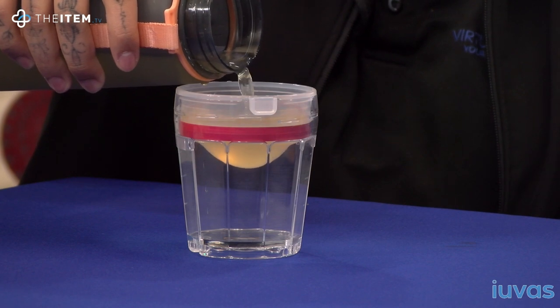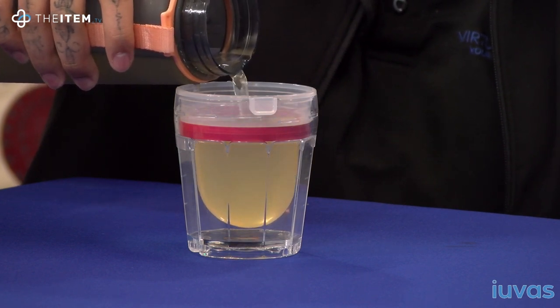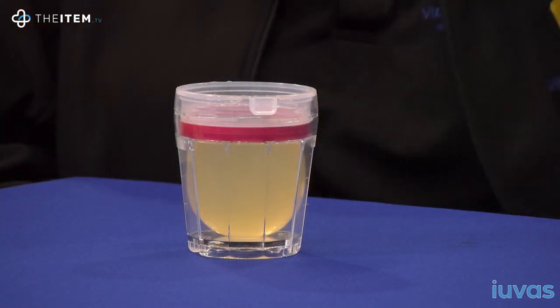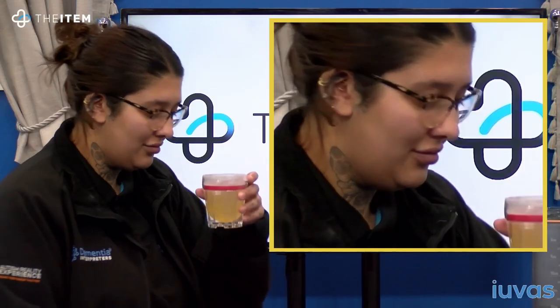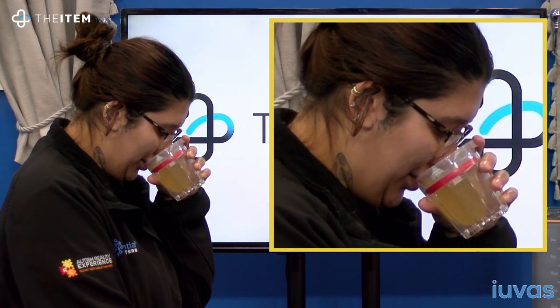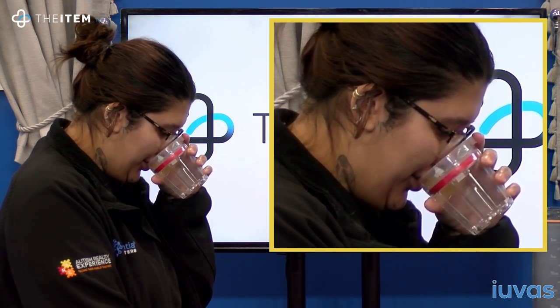So how can the Sipper Cup achieve this? When filling the Sipper Cup, the pad balloons out allowing the glass to be filled with either hot or cold liquids. The pad equalizes the level of the liquid in the vessel, as if drinking from an always-full glass. This allows you to drink all the liquid in the glass whilst maintaining a safe chin-down position, as demonstrated.